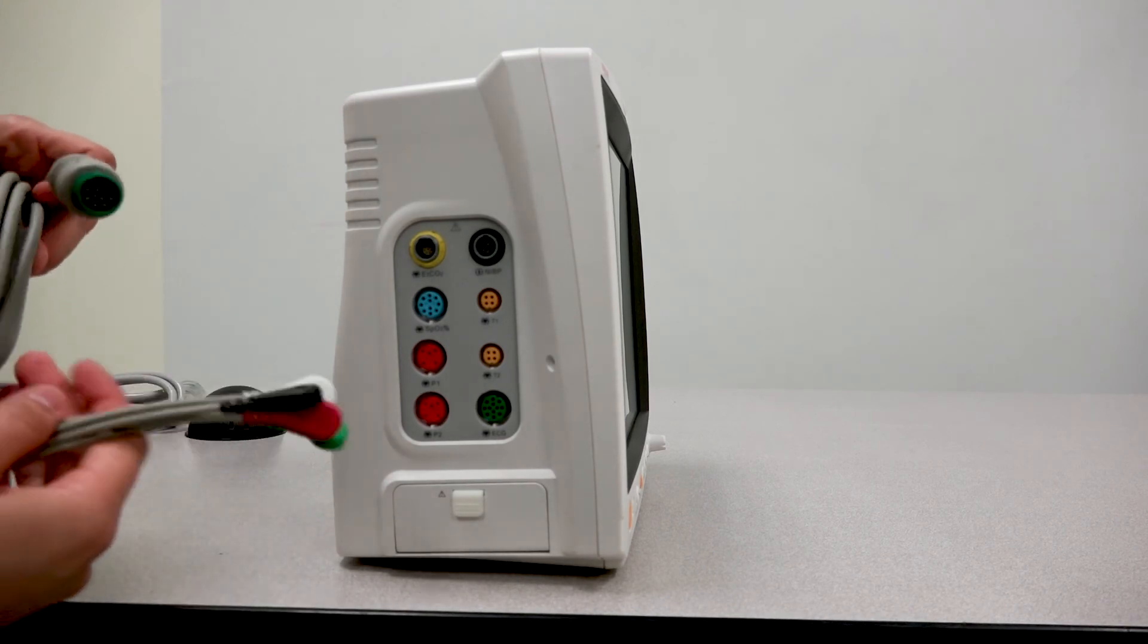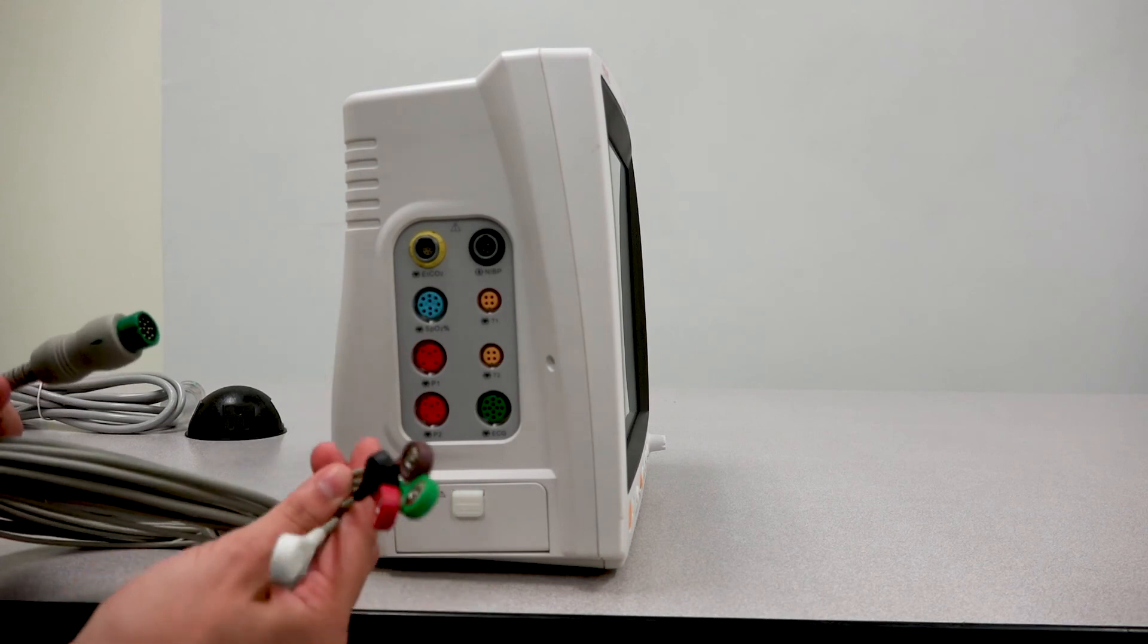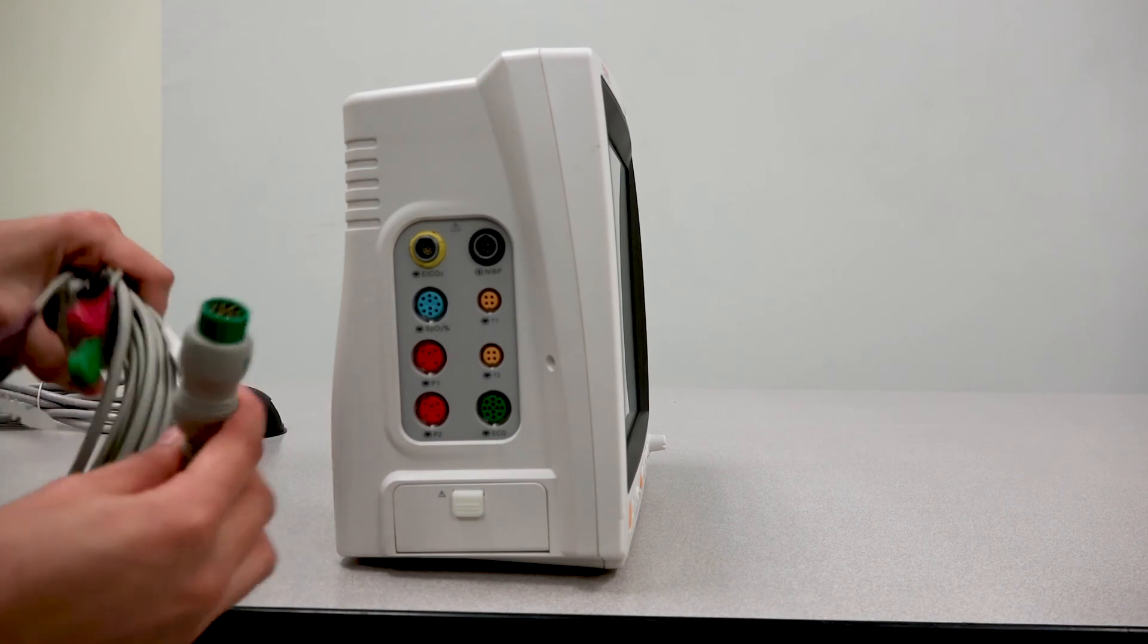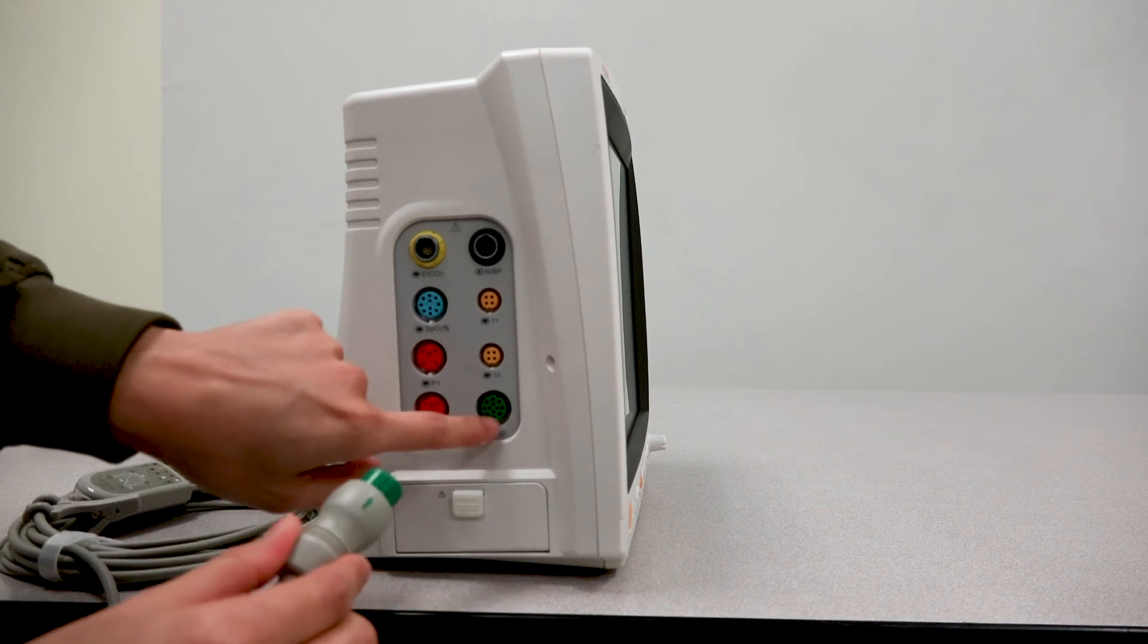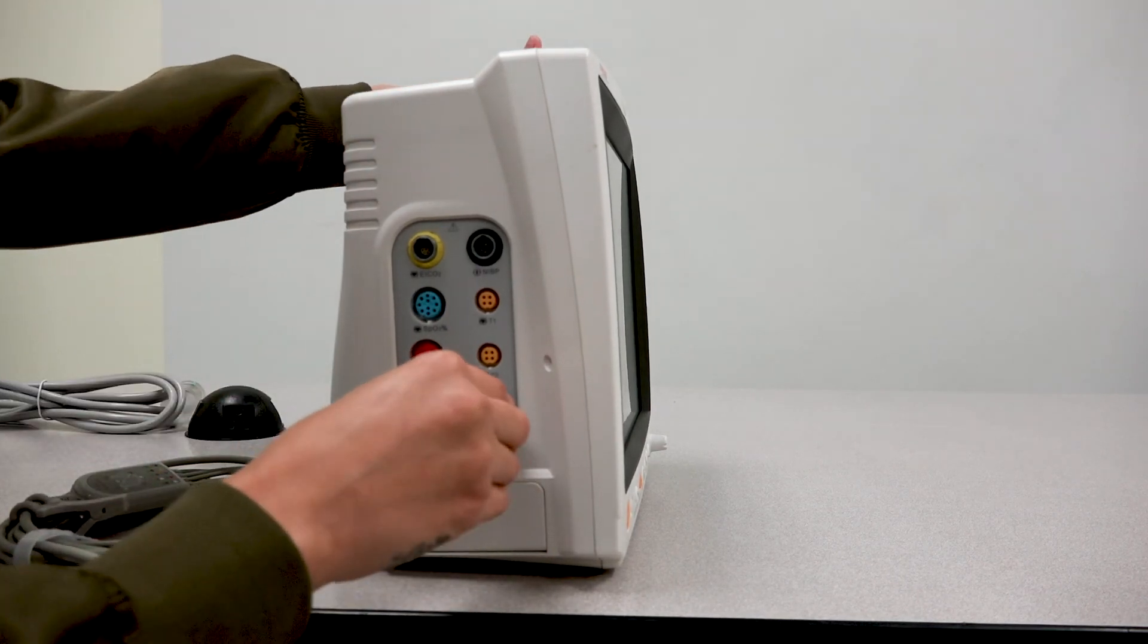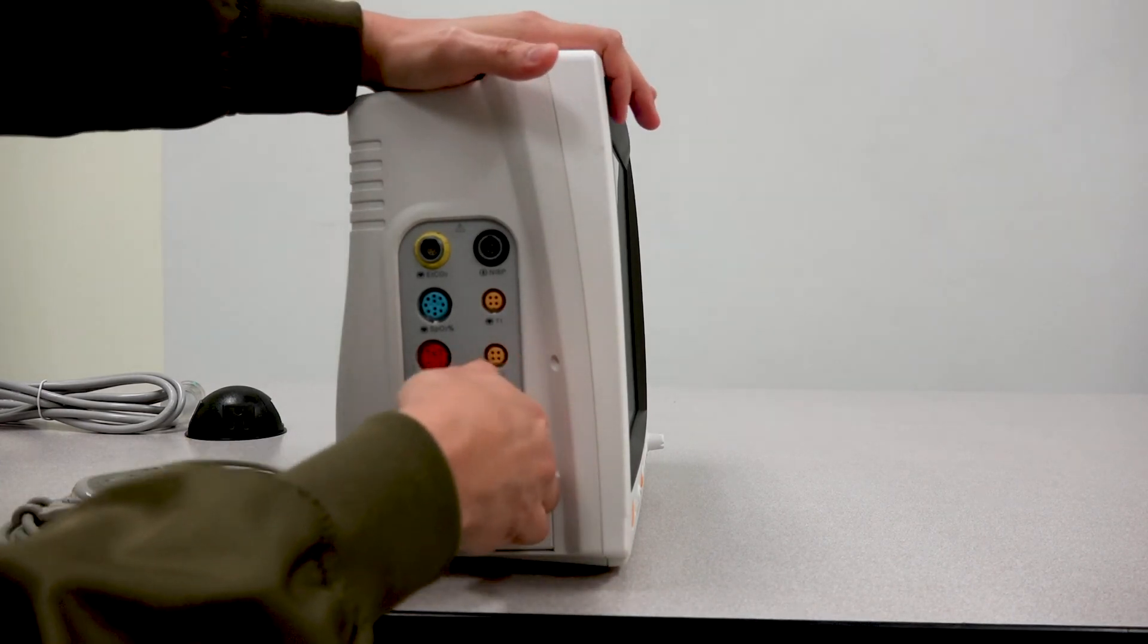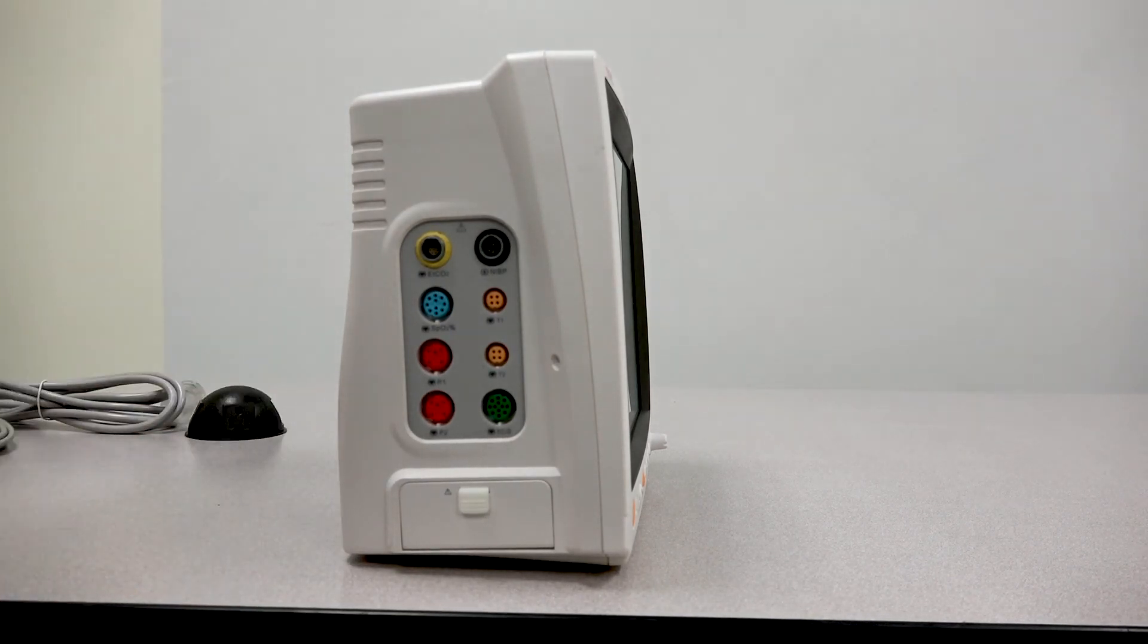With your ECG cable, again, you have the option of selecting a three lead patient cable or five lead patient cable. This case, we have a five lead. It's pretty simple, straightforward. Same deal with the groove. Make sure it aligns with the one on the monitor. Don't force if you feel resistance. And you just pull it out with no issue in order to remove it.